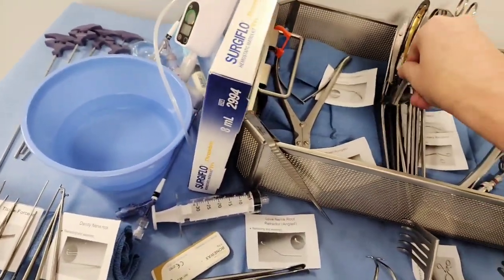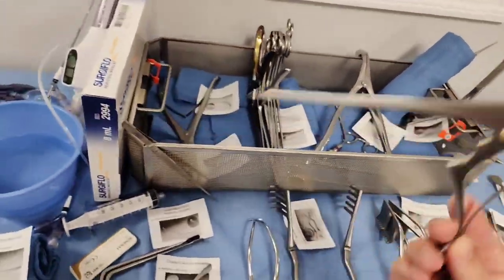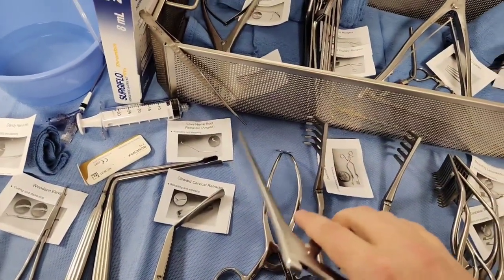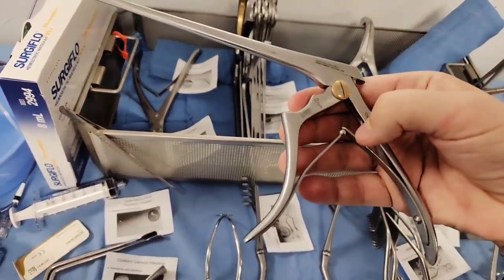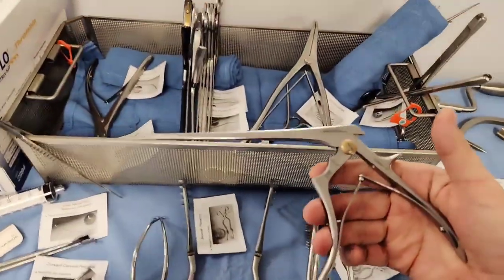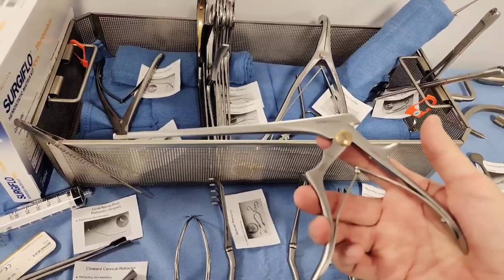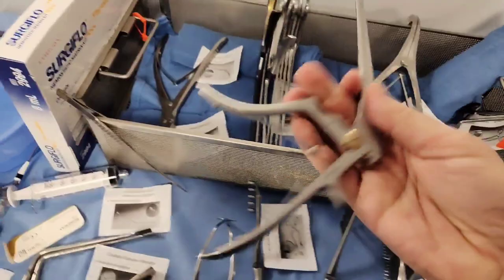The Kerrisson rongeur comes in different sizes: 1, 2, 3. They have a cutting mechanism — as a pro tip, make sure these are sharp. Check them on sterile paper on your field. Make sure the mechanism is working. For CST purposes, if you're taking lamina out of the patient during a laminectomy, you're using a Kerrisson rongeur. Have multiple sizes on your Mayo stand and let the doctor know which size you're giving them.